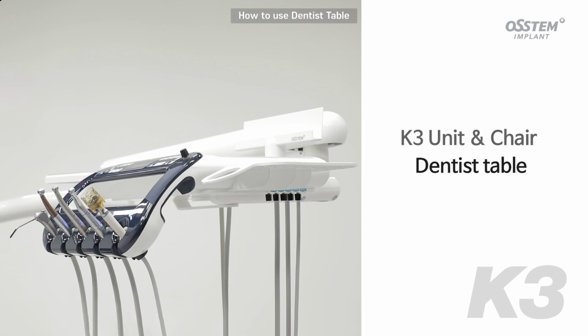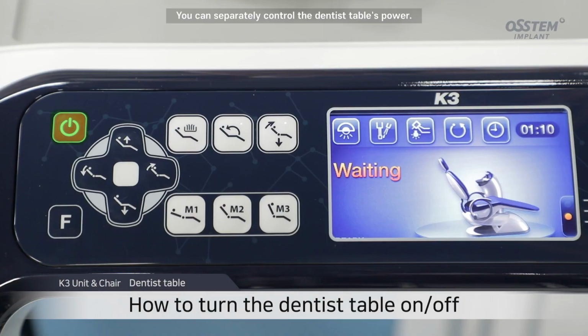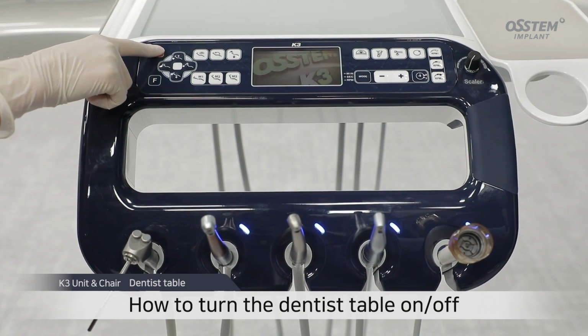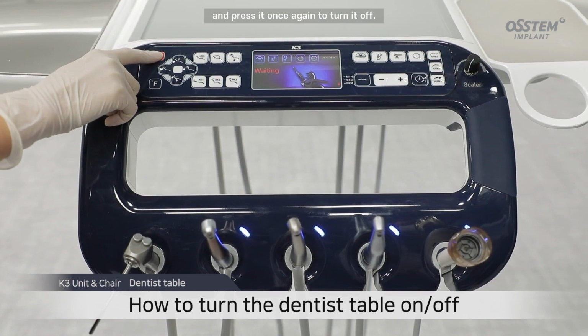How to use dentist table. You can separately control the dentist table's power. Press the power button once to turn on the dentist table, and press it once again to turn it off.